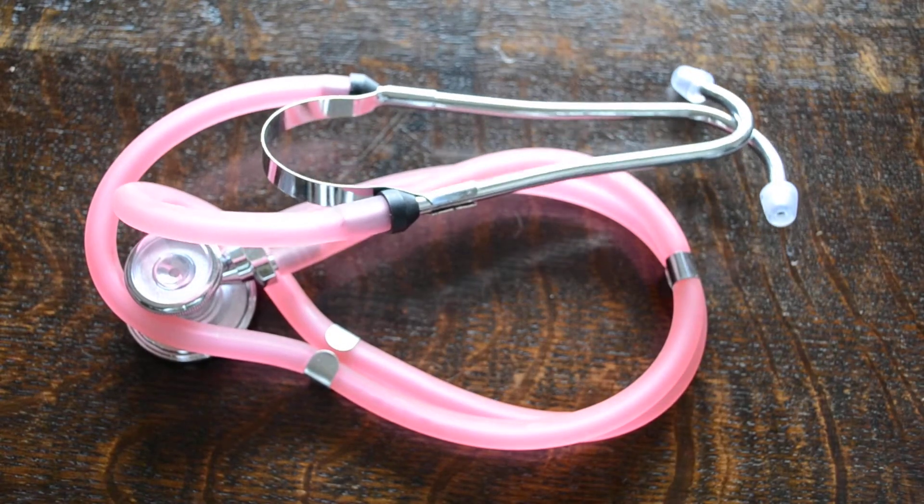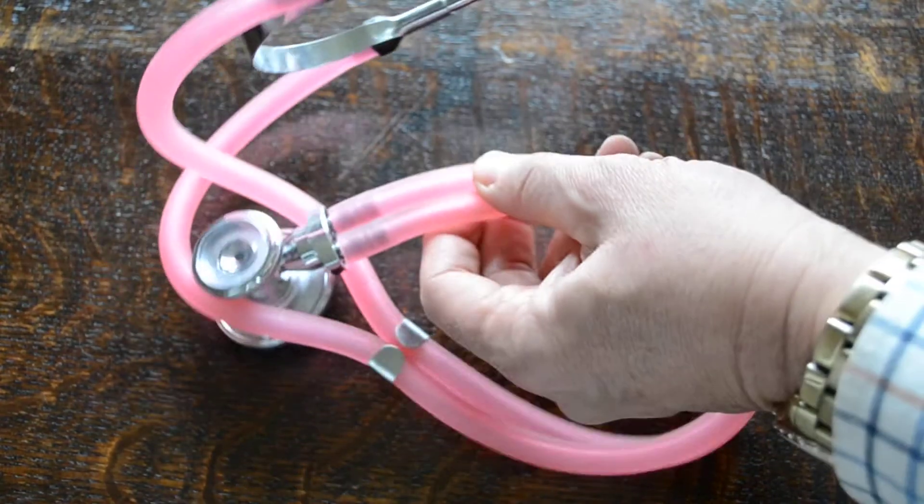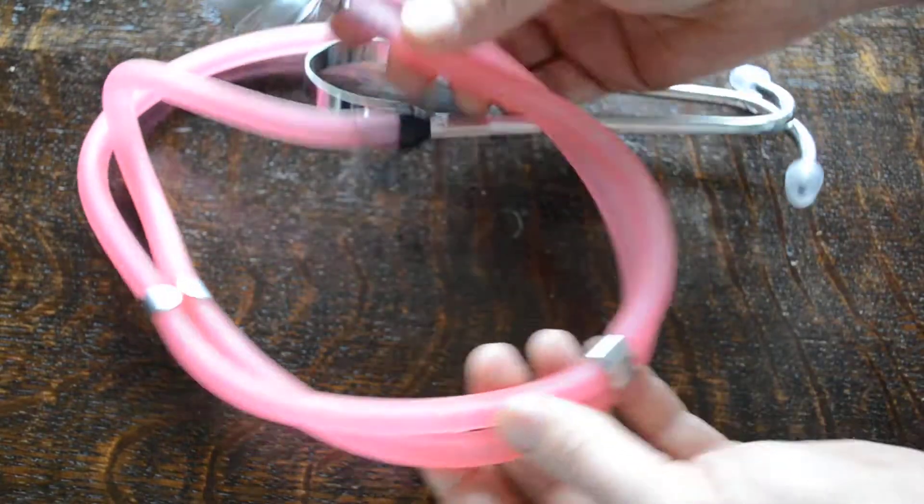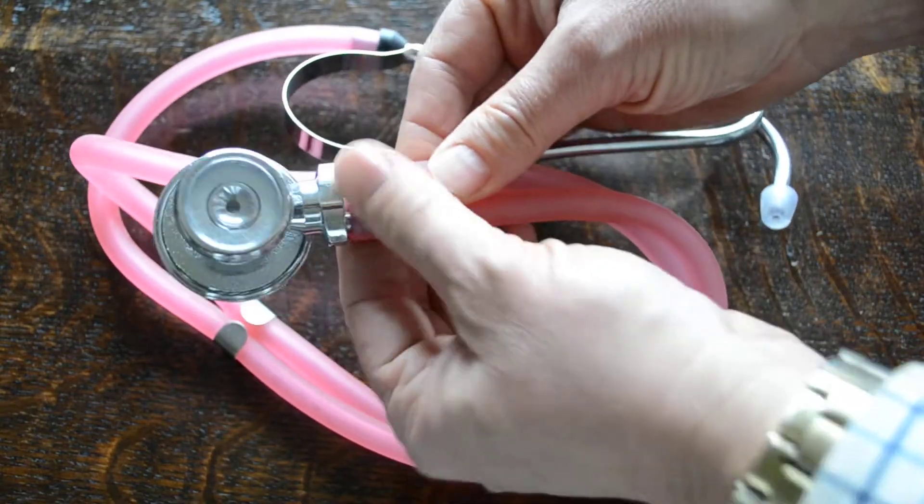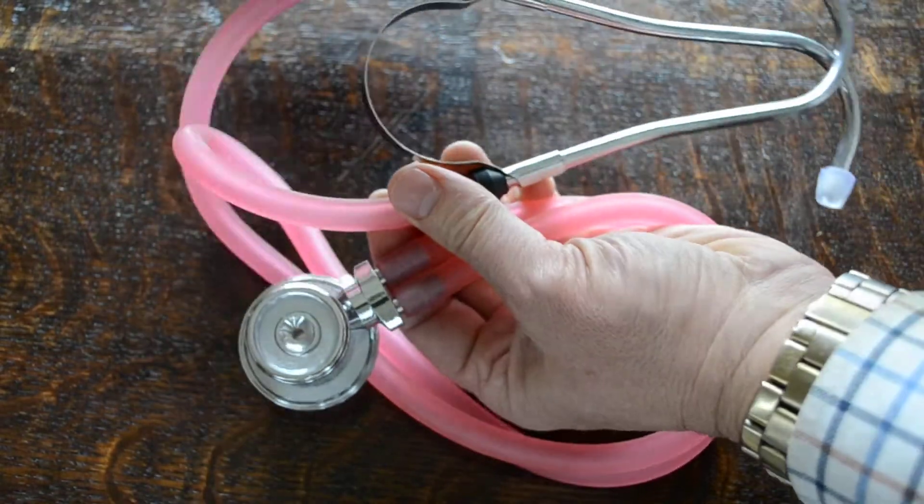We'll just examine the tubing initially and see from the color of this - I hope the video is picking up the translucent see-through pink tubing on this unit. You can actually see through it; it's almost clear with a pink tone to it.